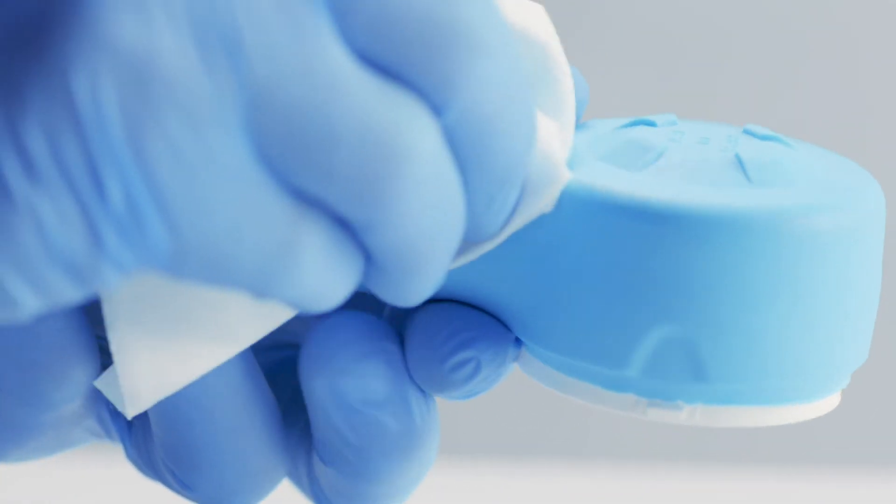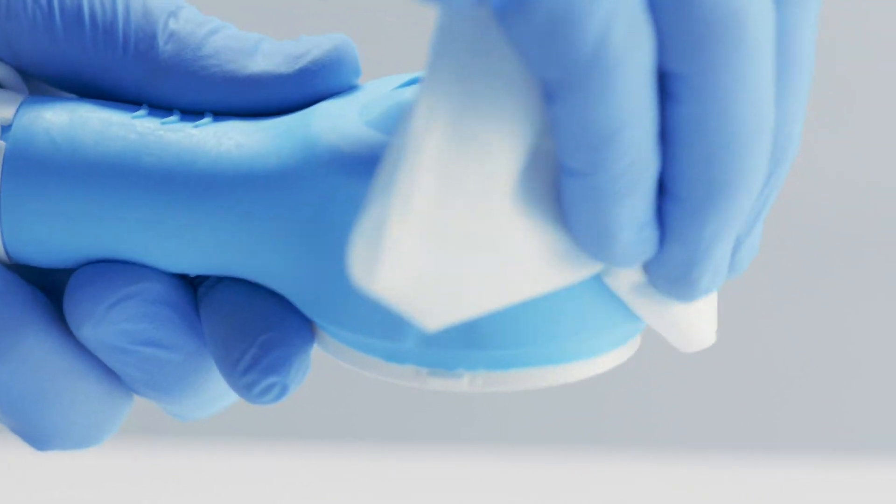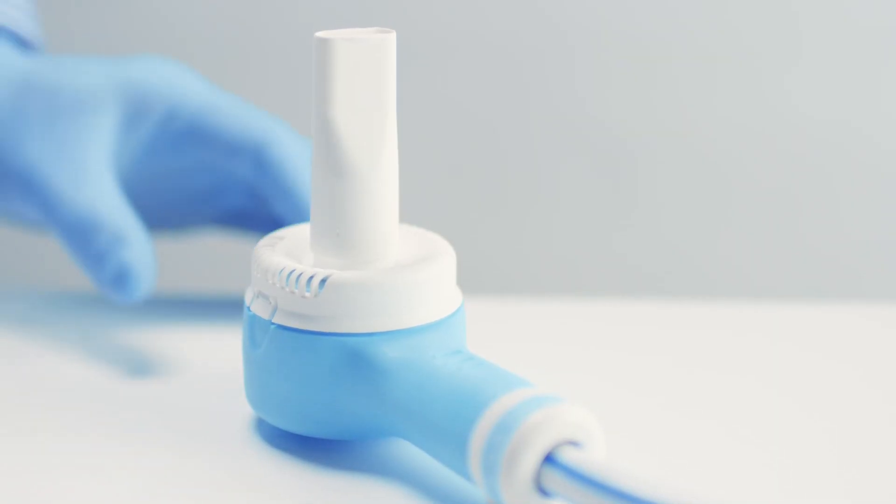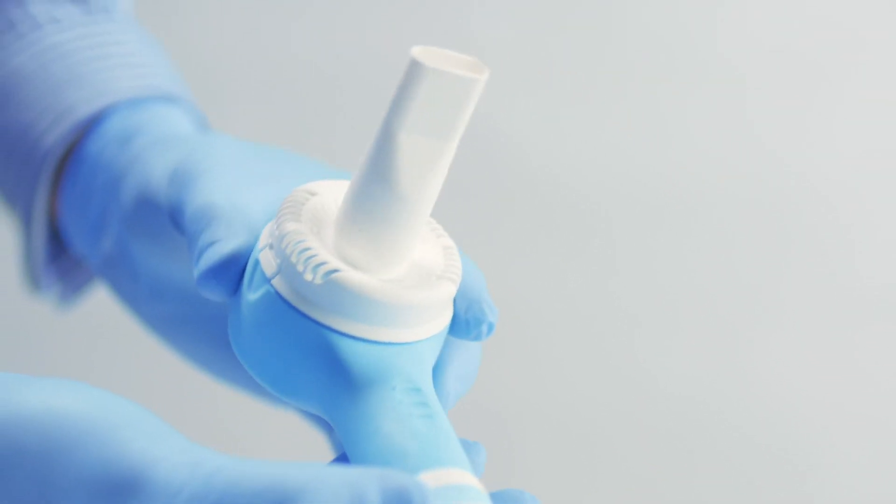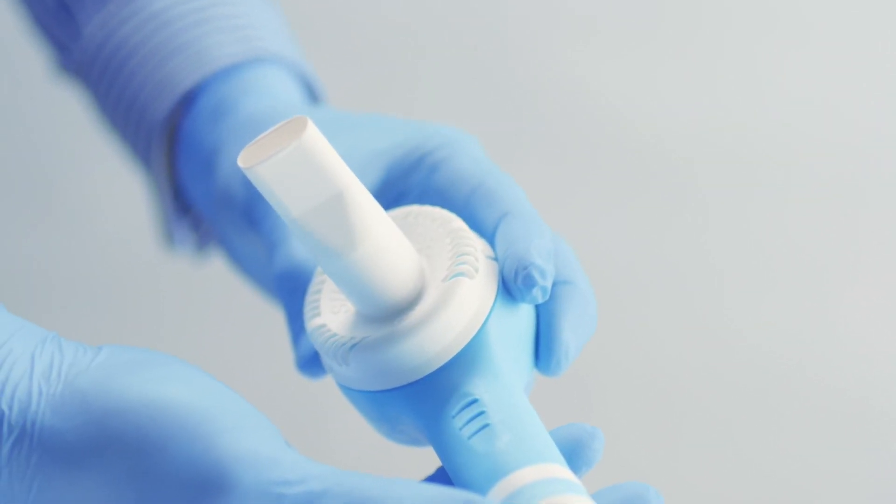The Ultraflow demand valve needs to be serviced at defined service intervals. Servicing should only be completed by a qualified person using genuine spare parts provided by BPR Medical.